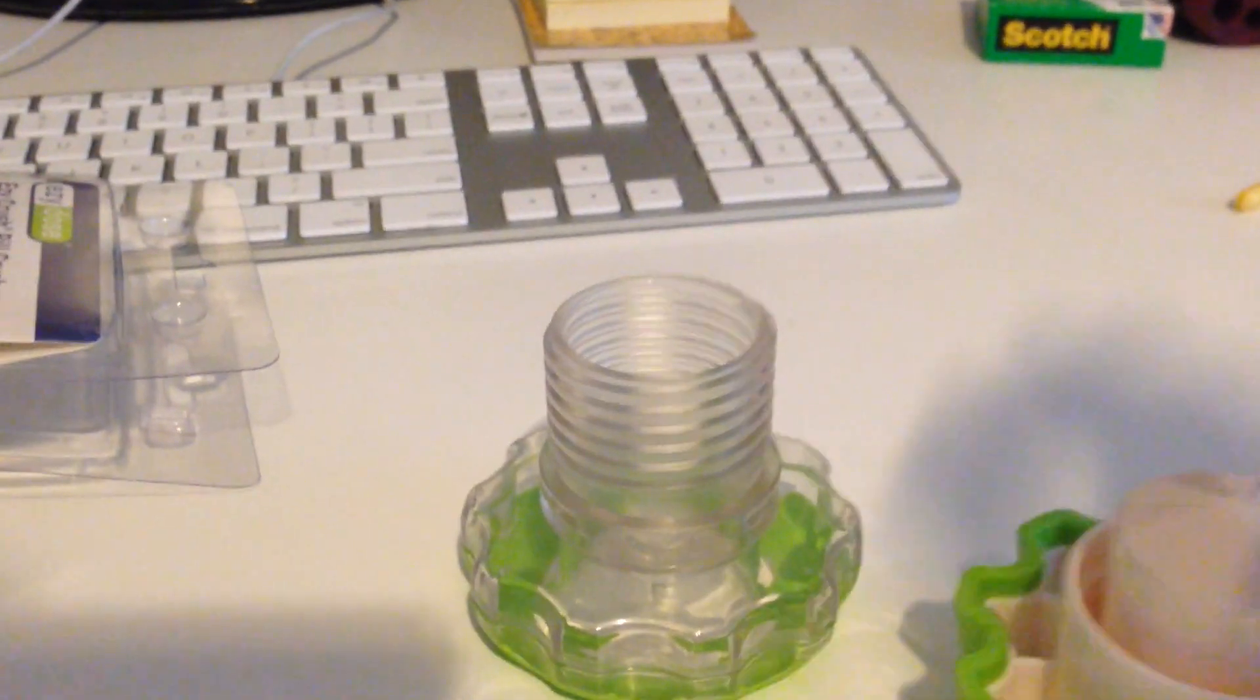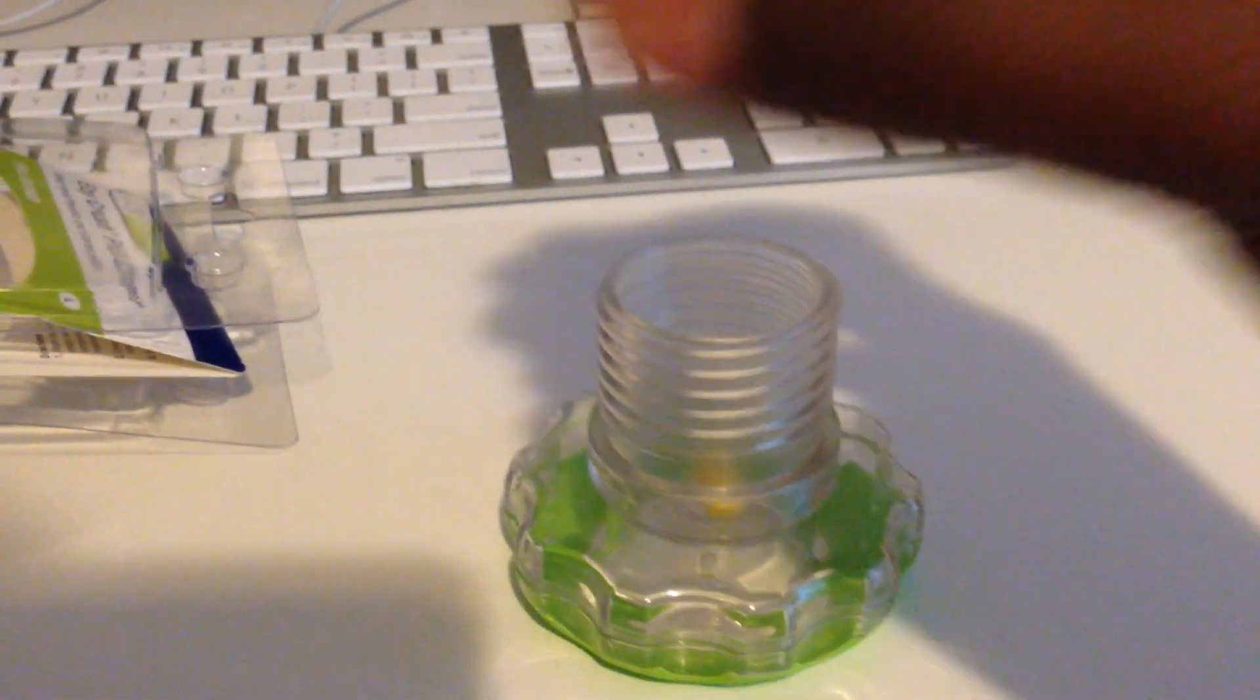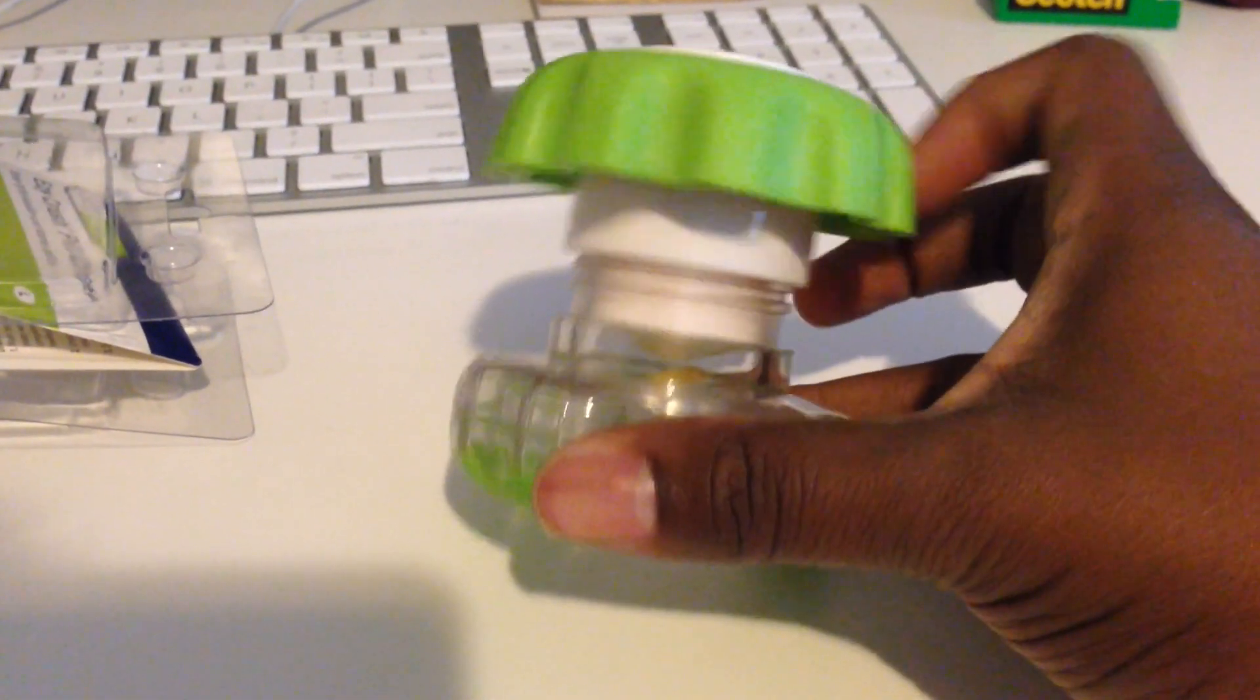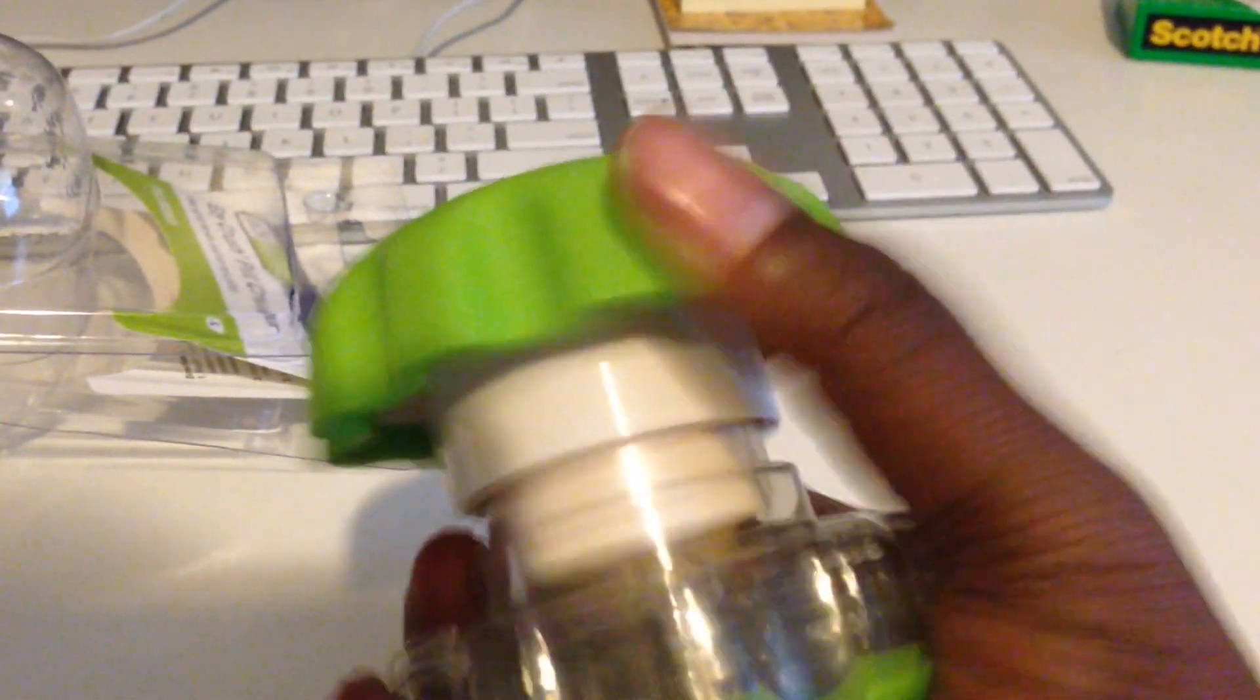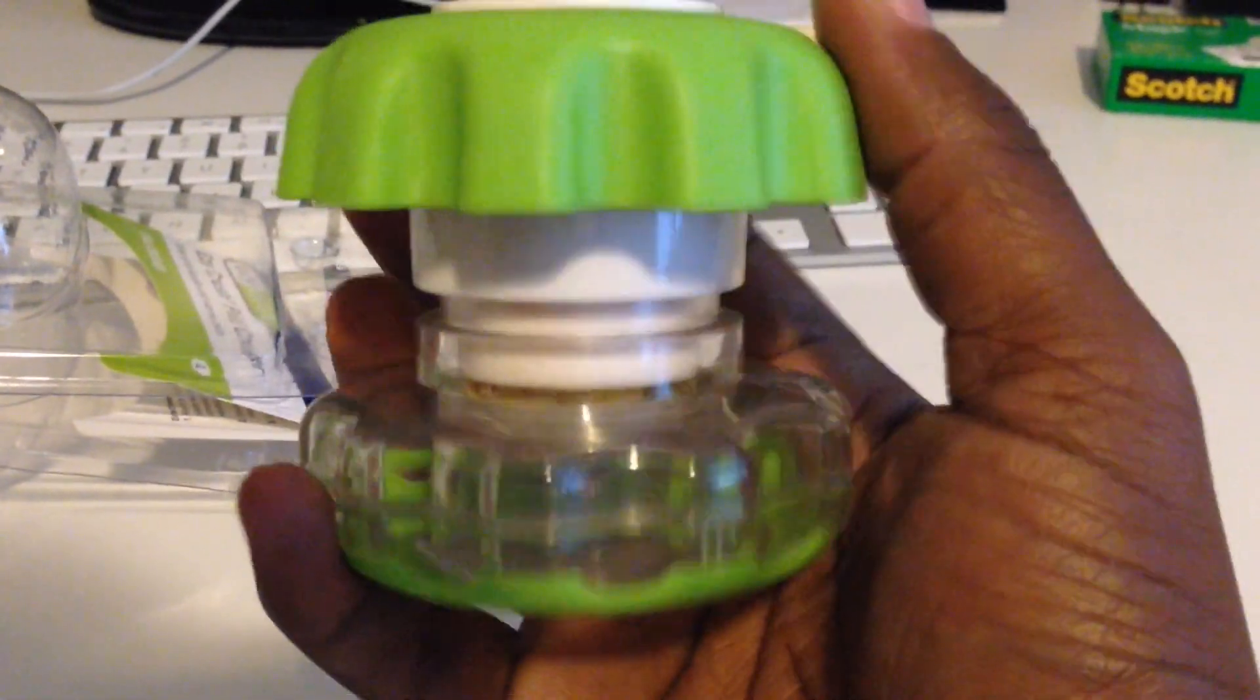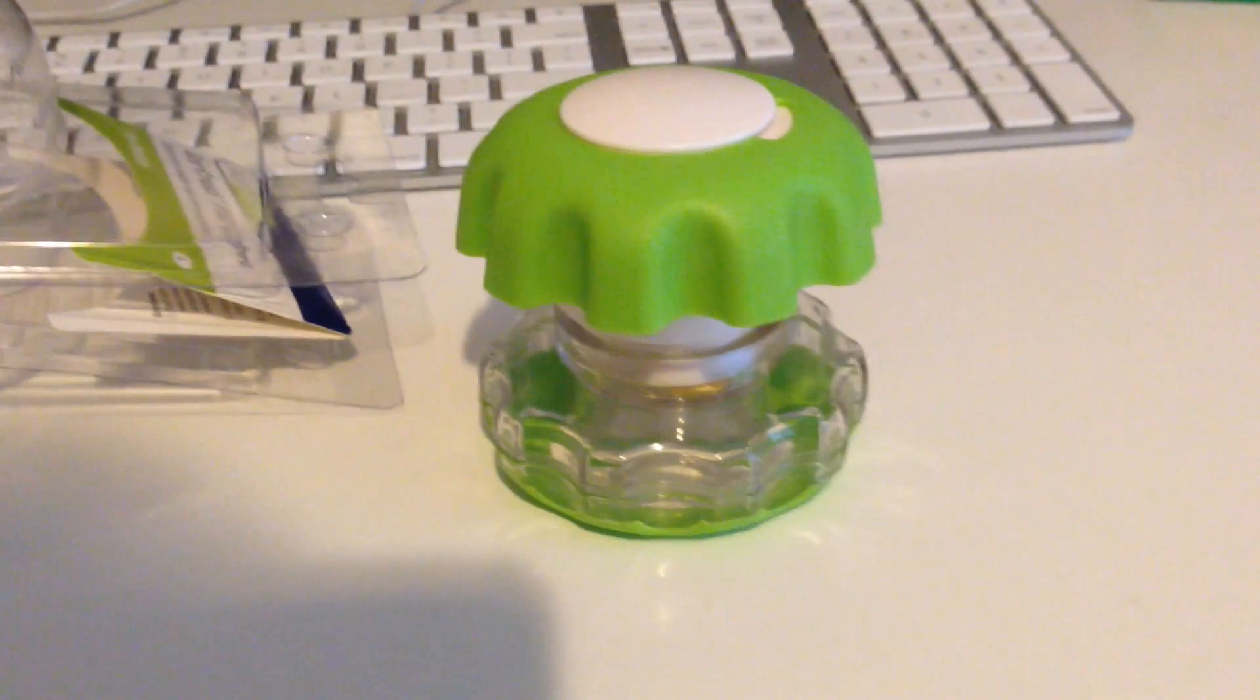So let's go ahead and try this out right now. Unfortunately I'm operating with one hand so please forgive me. Oh yeah, it's crushing it though. As you can see, it's breaking in half, it's grinding it. So I'm going to turn this off and screw this all the way down, then I'll be back so you can see it in powder form.